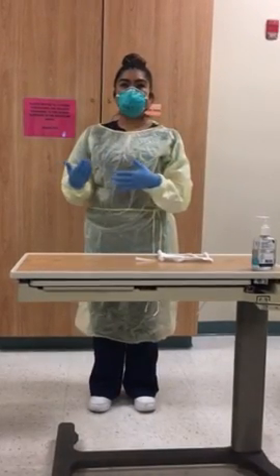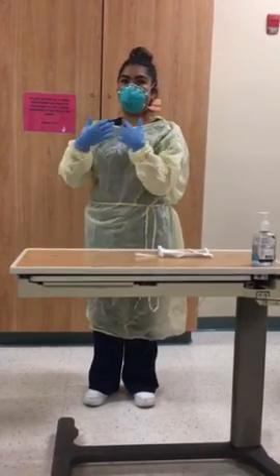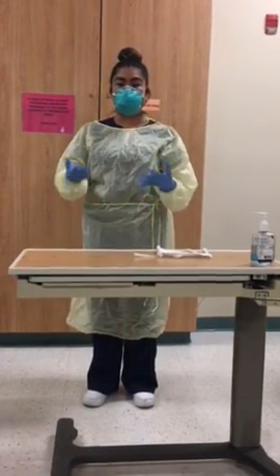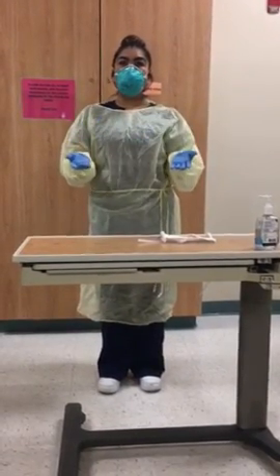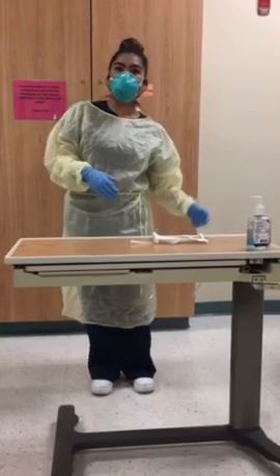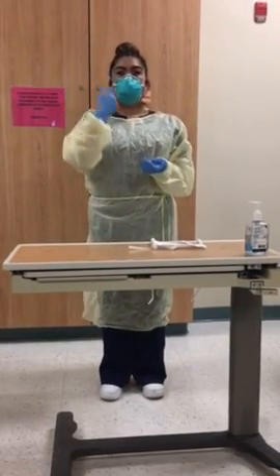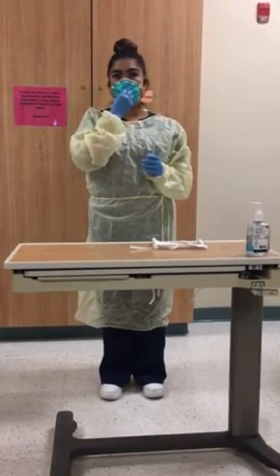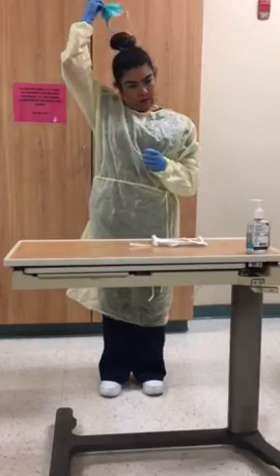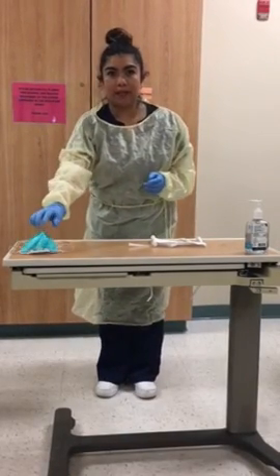When I'm going to leave the room, you're going to be in a specialized room where you don your equipment on and you remove it. So if you have shoe covers on, you would remove the shoe covers first, then the cap, and then you're going to proceed with your mask. For the mask, you want to just pinch the mask, and you want to dispose of this in a biohazard container.